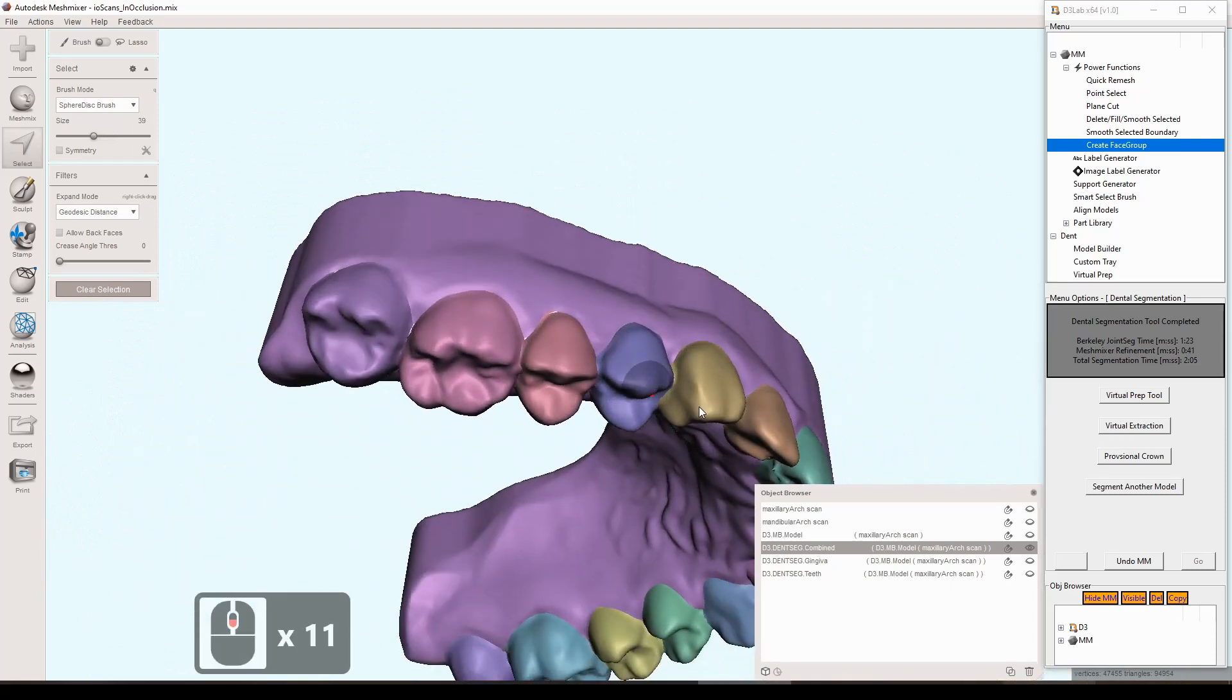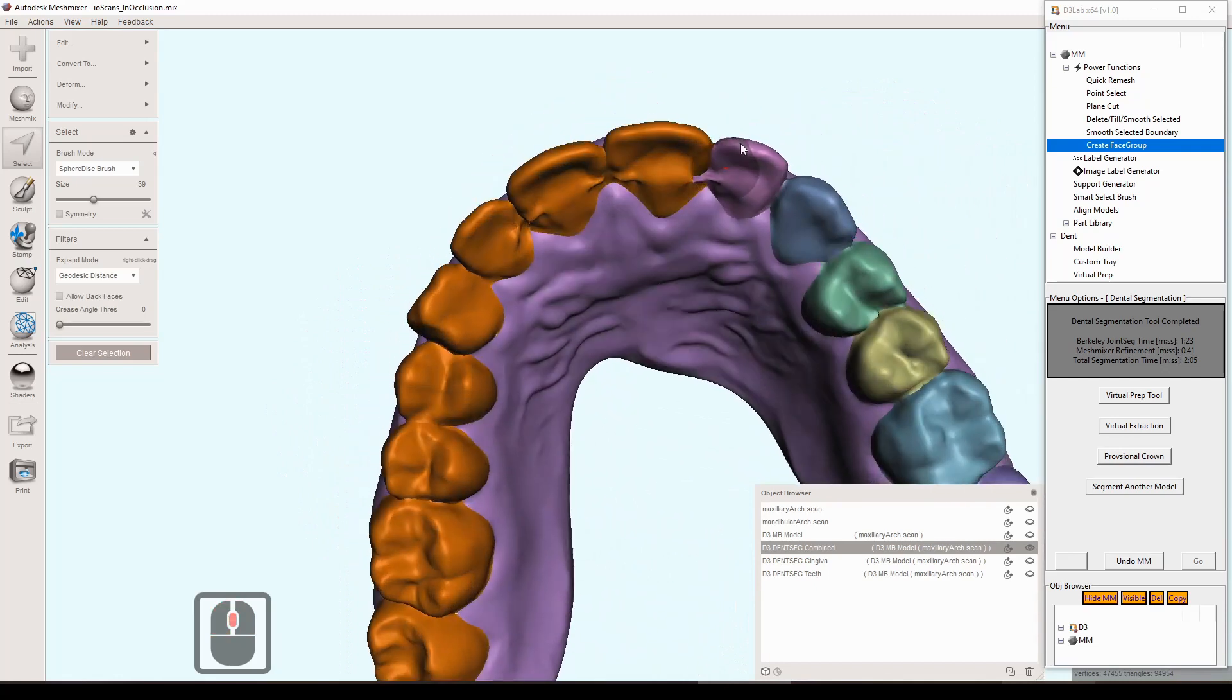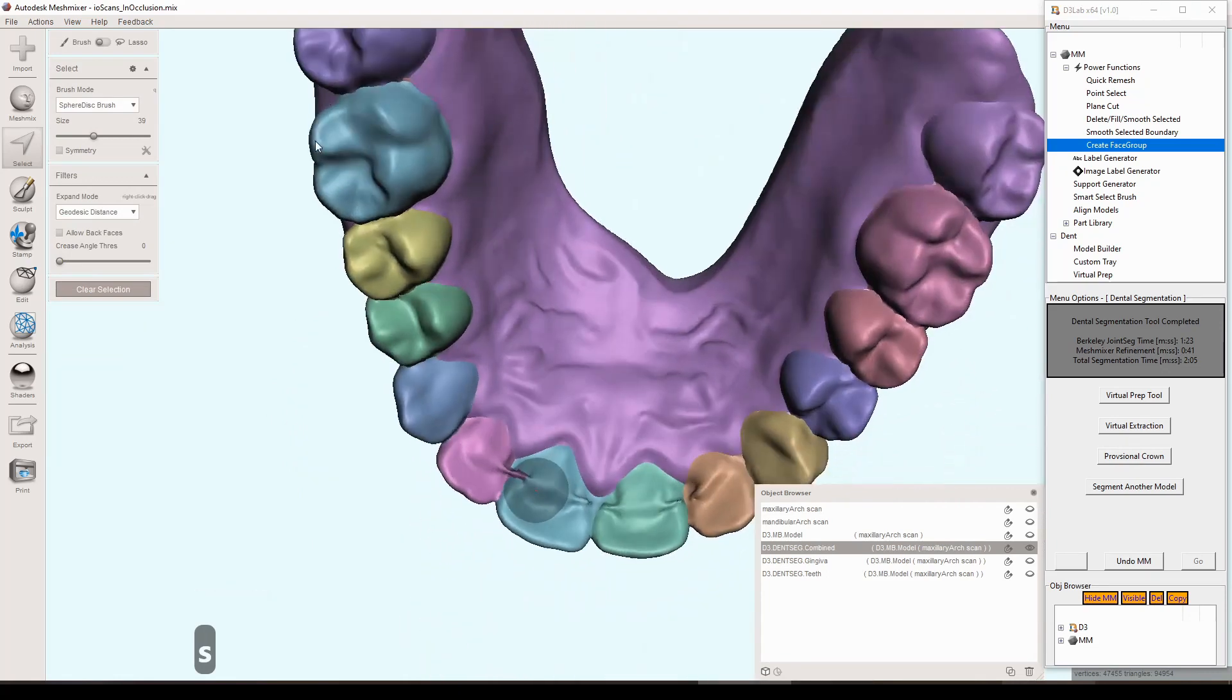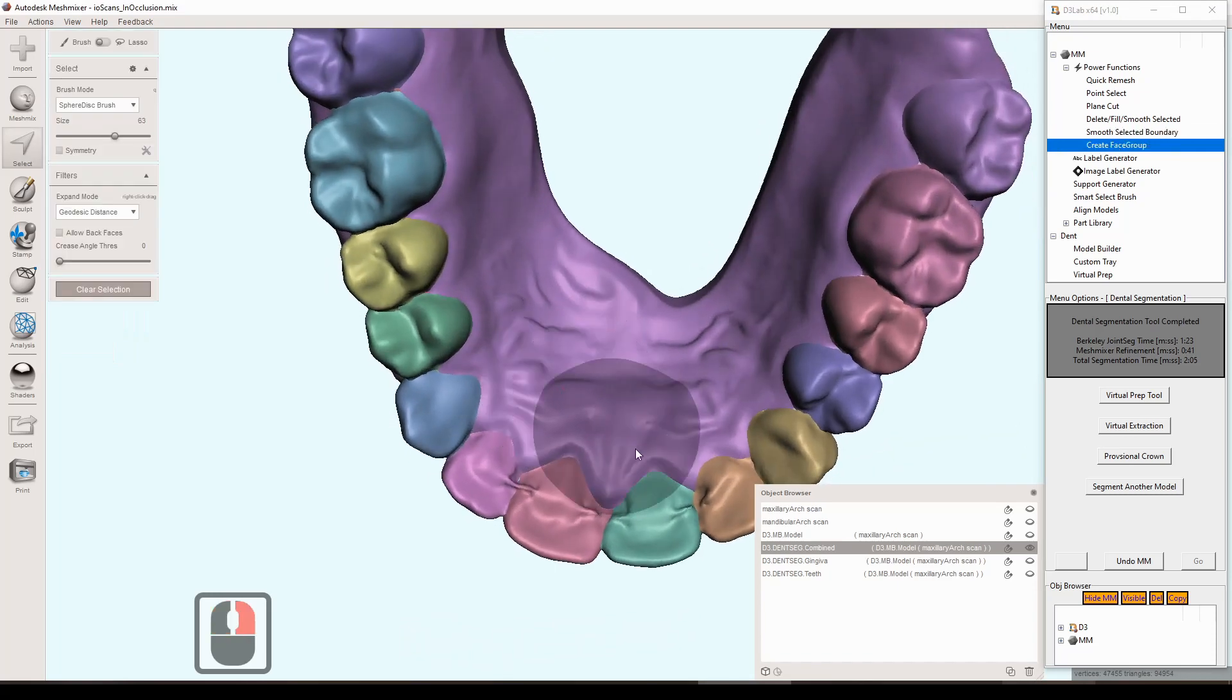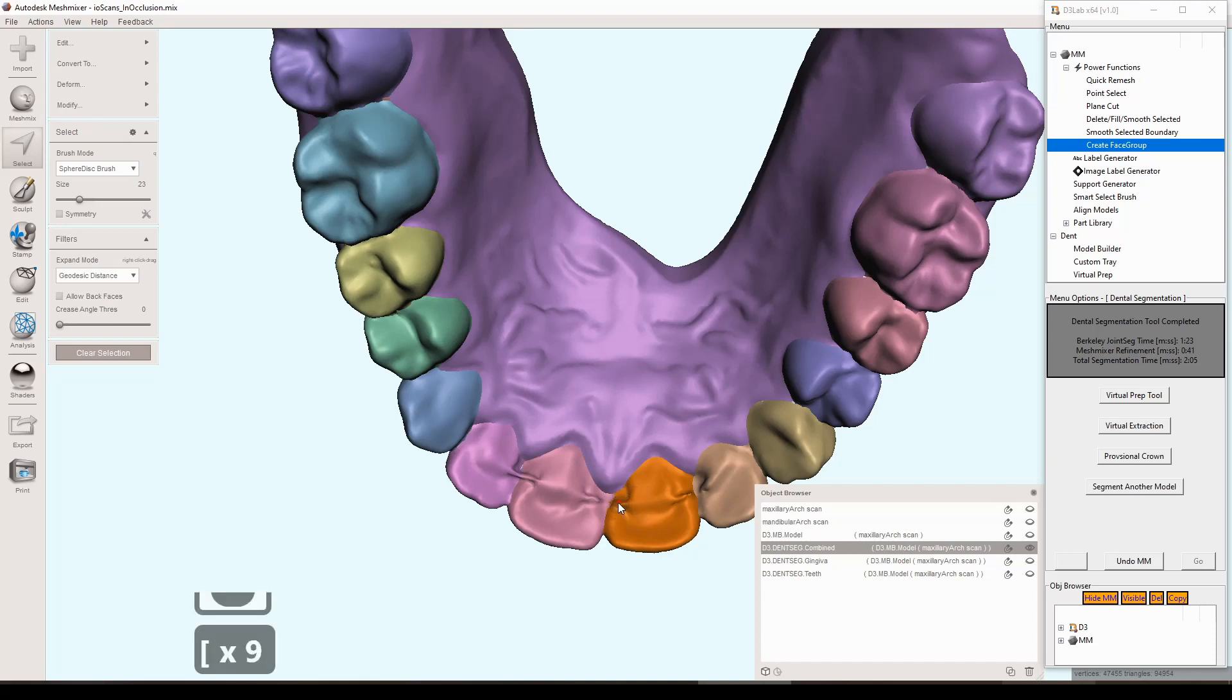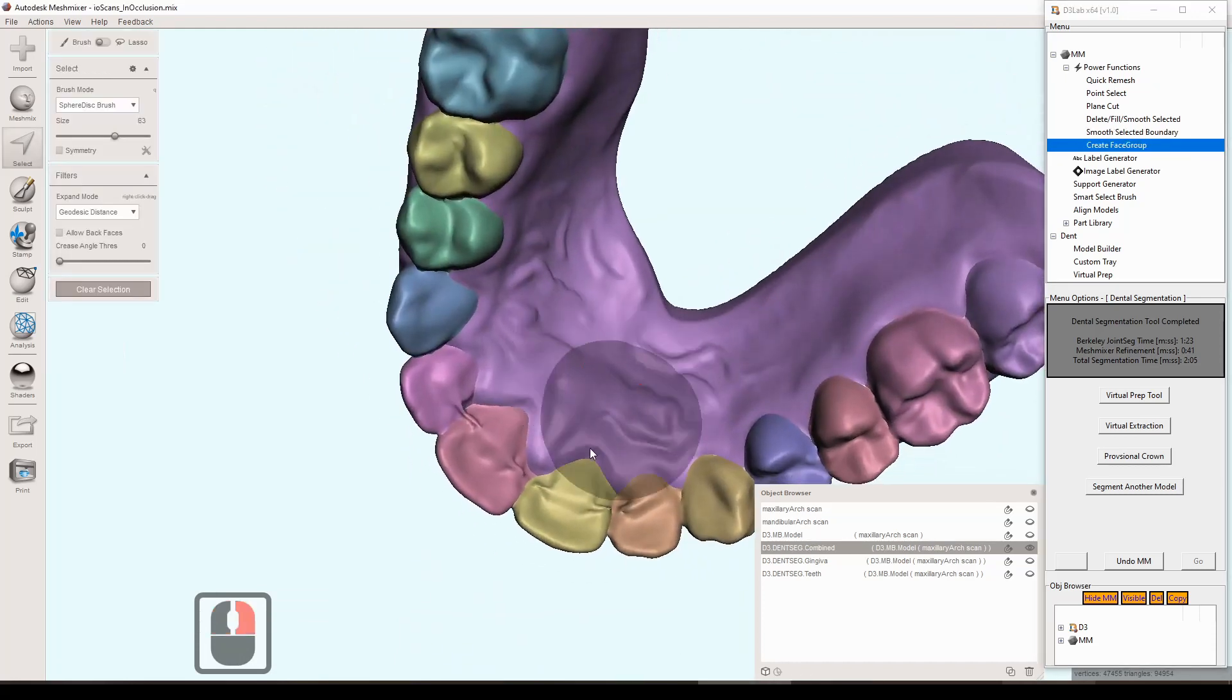Just taking a look at the rest of the model, one way to check things is just double click on each tooth individually, make sure the whole tooth is selected and all the boundaries look pretty good. Just going through double checking, and it looks like there's something a little funny with that one. So we'll get back into the normal select tool, double click the tooth, and just add to that just a tiny bit. Go back up, smooth and create face group. Now there are hotkeys for this which is way faster. Smooth boundary is B and create face group is control G, but I don't expect people to have these memorized so I included them up there to click on. Just in case you wanted to speed things up you can do it that way too.